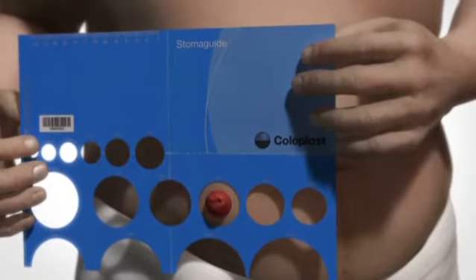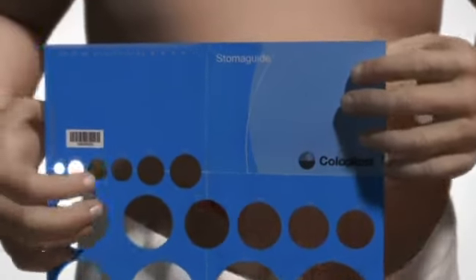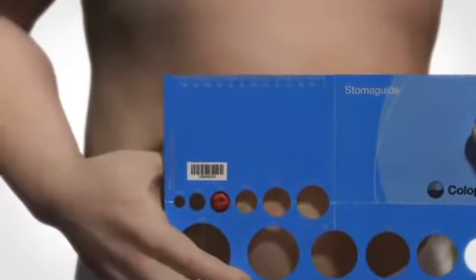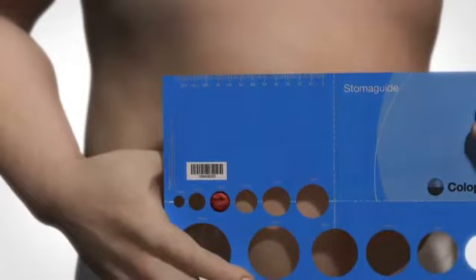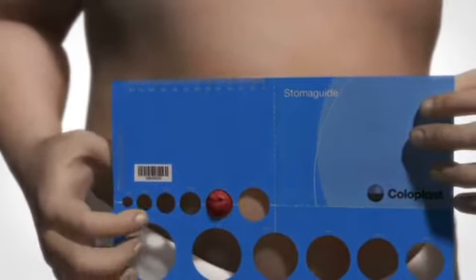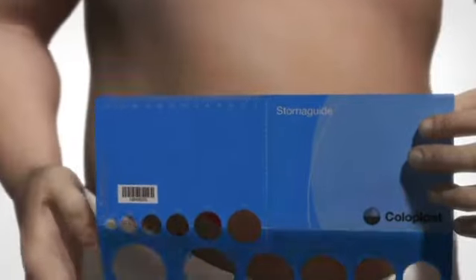If the hole is too big, the skin will not be protected properly. If the hole is too narrow, the adhesive will not adhere properly. The hole must fit precisely to the size of your stoma.